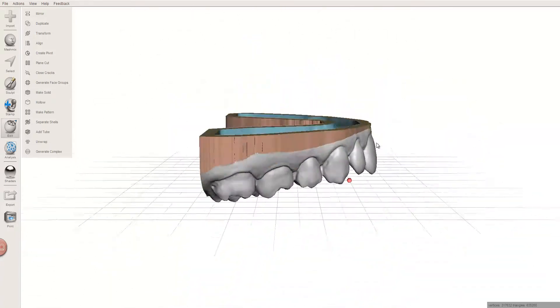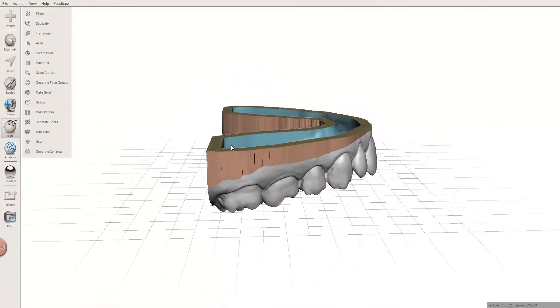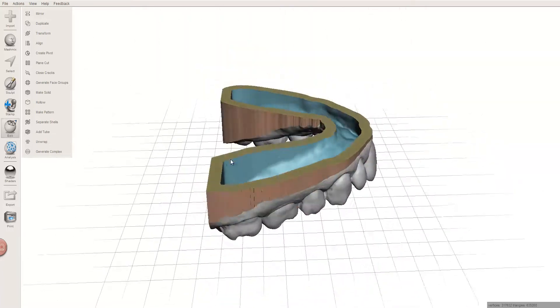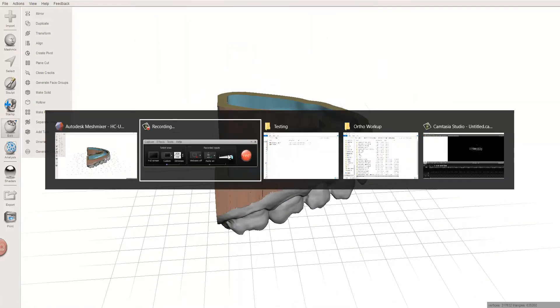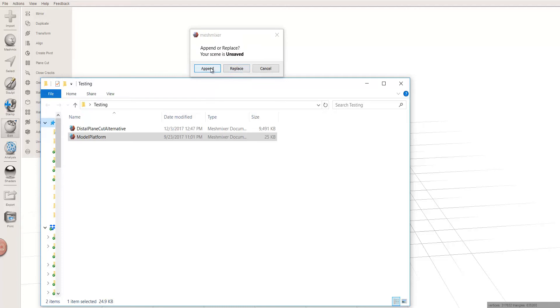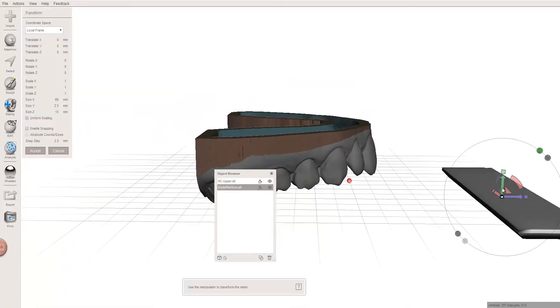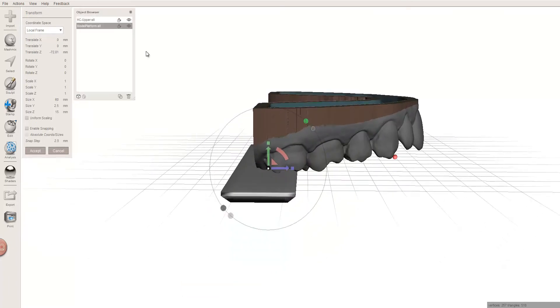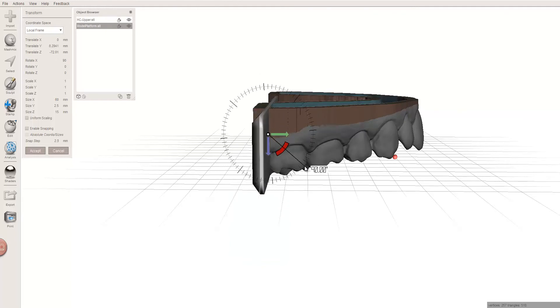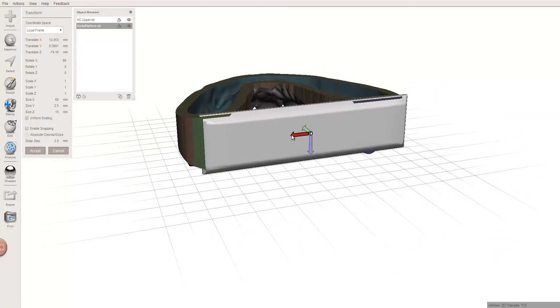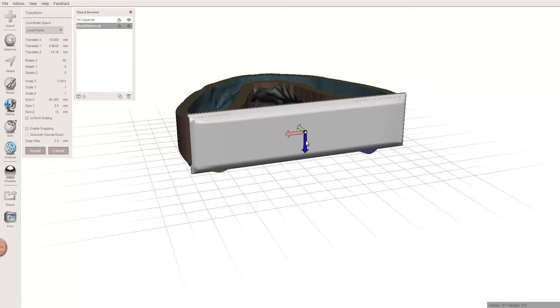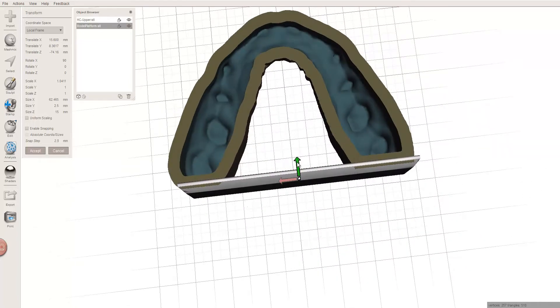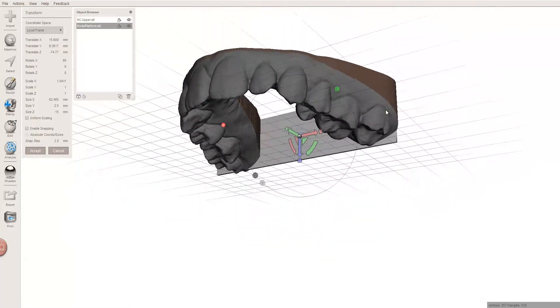The problem is, what if we wanted the angle? Obviously I've already skipped that process, but how can I account for that angle now, how can I go back and fix that? Well, one of the things that I've shared on Thingiverse, a free 3D file sharing platform, is this model platform. Let's just go ahead and append - I'm going to drag and drop it in here. Now, if we're doing just a 90 degree print, I can bring this, let's get this out of the way, turn it 90 degrees, and stack it right on the ends of this model, and slide it back just a touch, and now I'm ready to print. So that's one of the options.